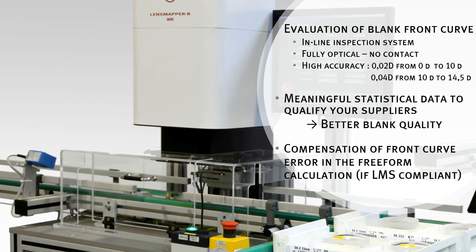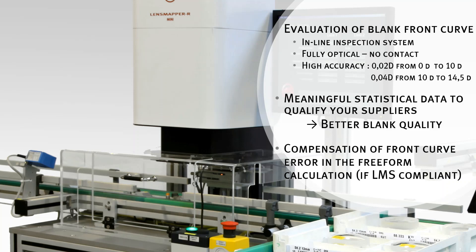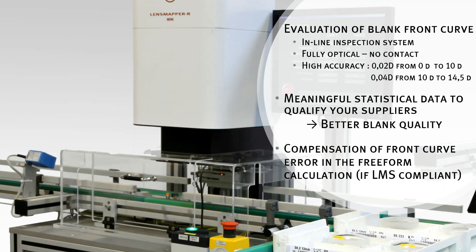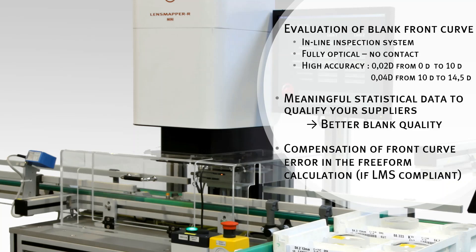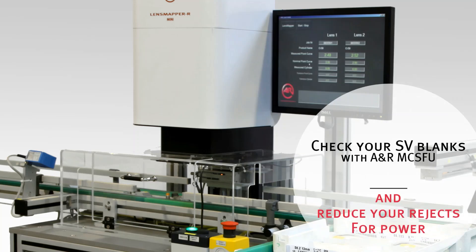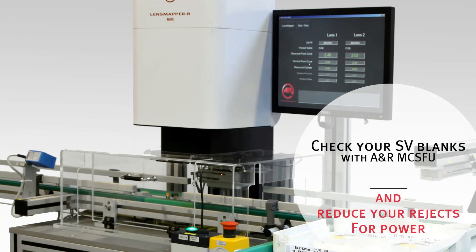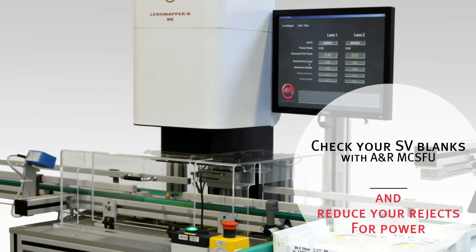The MCSFU also provides the data for an inline recalculation of the freeform backside geometry. The lab is now able to compensate for the front curve error, and this is extremely valuable because it leads to reducing the rejects for power.